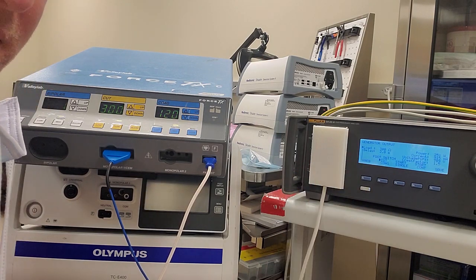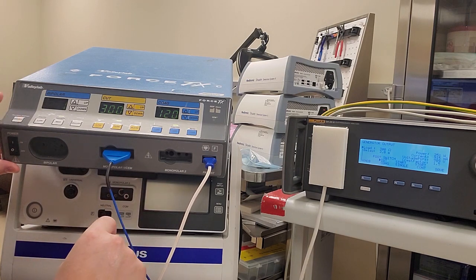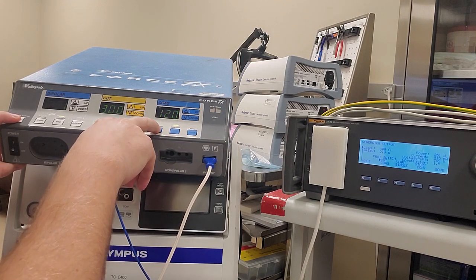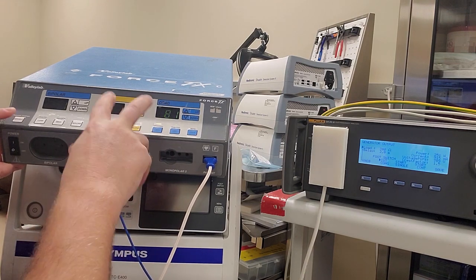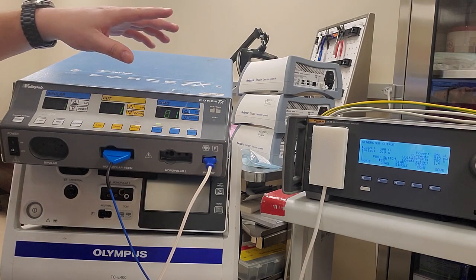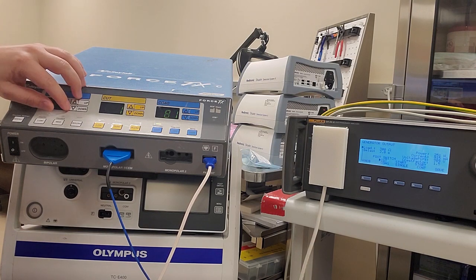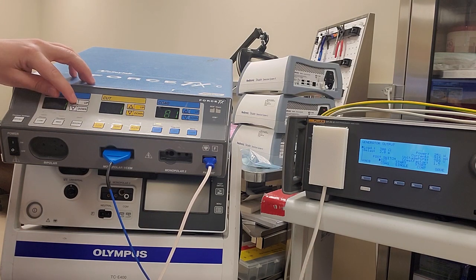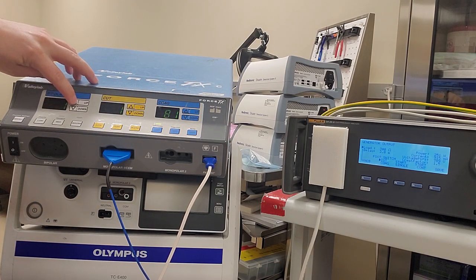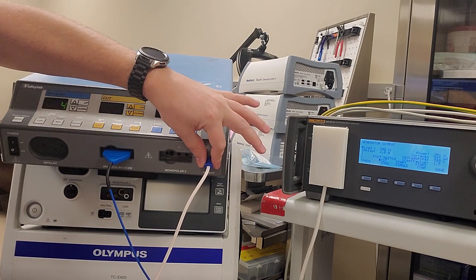To get into calibration mode, you're going to press the Recall button, then Pure and Desiccate. It should show 1181 or something similar. Bipolar and these categories are the different tests — this number does not correlate to those ones. You go up to Test 4, which is to calibrate your REM lead, and then we're going to go to Test 5.